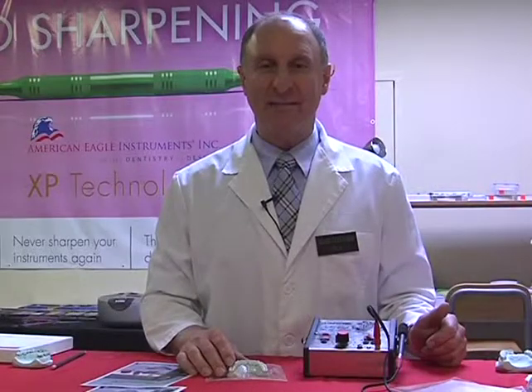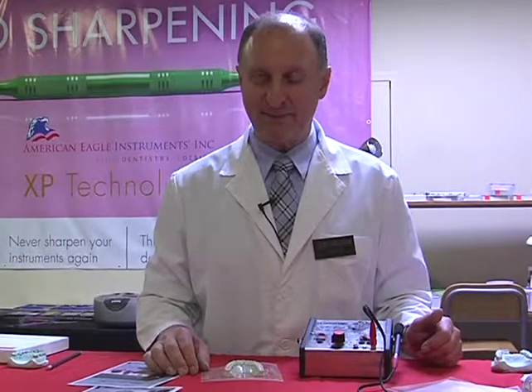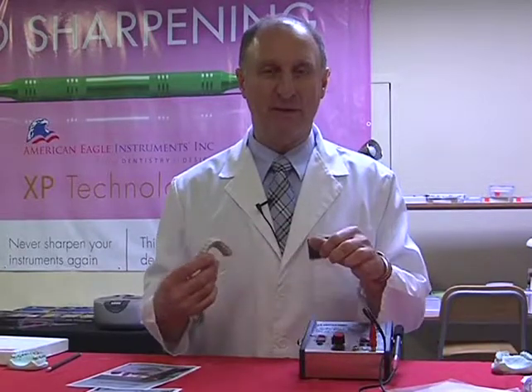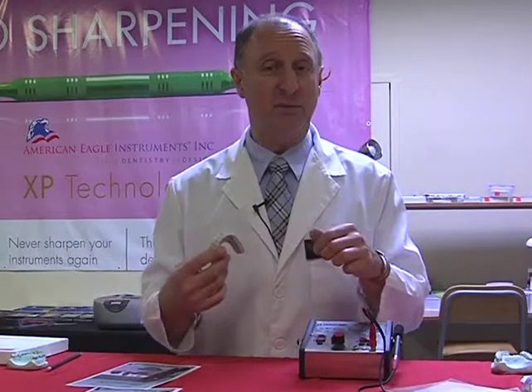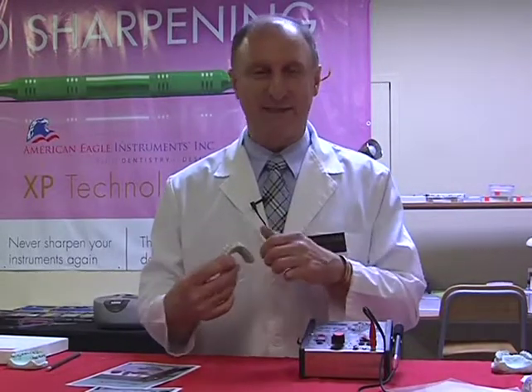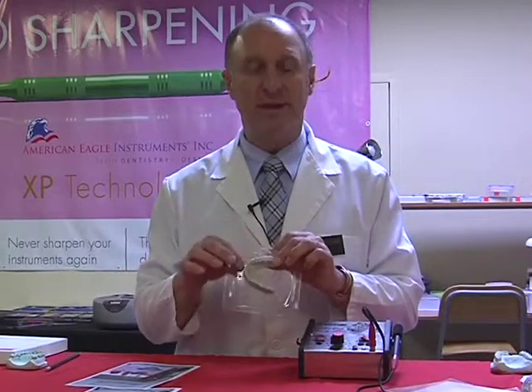For trimming our bleaching tray, instead of using a pair of scissors, in which case a lot of people pull the bleaching tray away from the model, the problem is you can deform or stretch the material as you're pulling it away if there are a few small undercut areas which grab hold of that material. So what I prefer to do is trim it on the model itself.